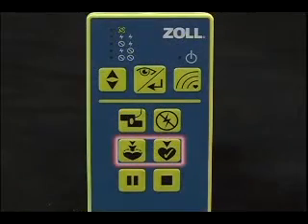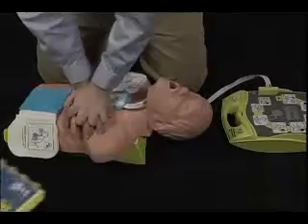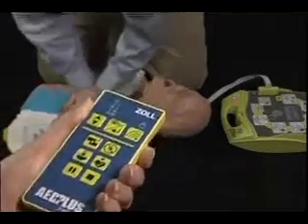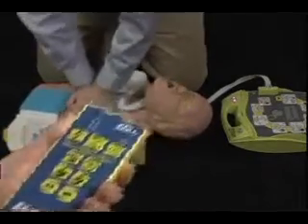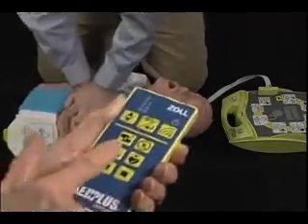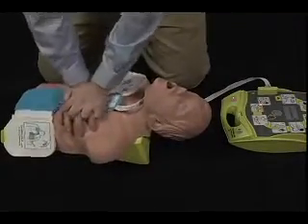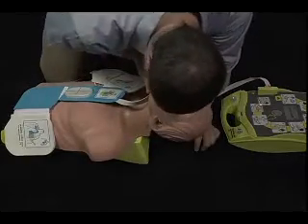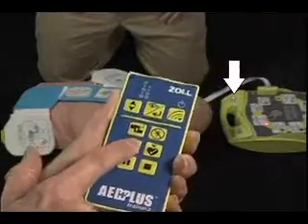The 2 middle buttons can only be used during the CPR interval while the Trainer2 unit is beeping in a scenario with the CPR metronome on. Push the left button once to make the Trainer2 say, Push harder. Push the right button once to make the Trainer2 say, Good compressions. Both middle buttons can be used at any time during the CPR interval. But at other times, these buttons are invalid and their transmissions will be rejected by the Trainer2 unit.